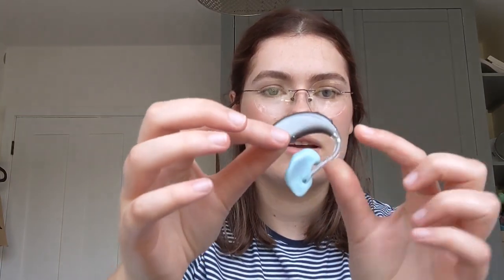I'll take one out and show you. This bit goes behind your ear and you've got a tube and an ear mold. Usually this bit's clear but I wanted to be fancy so I got blue. I was also told that the clear can discolor and look a bit funny over time, so I went for blue for that reason too. A tip for anyone getting hearing aids with a full ear mold: see if you can get it in a color because it might hold up better over time. I haven't had these very long so I can't 100% vouch for that.